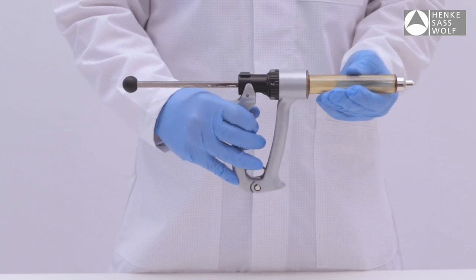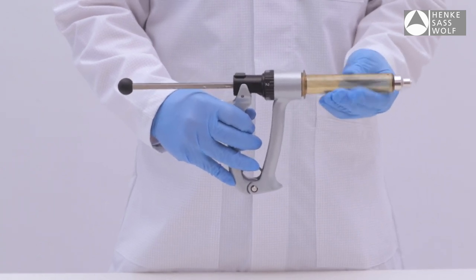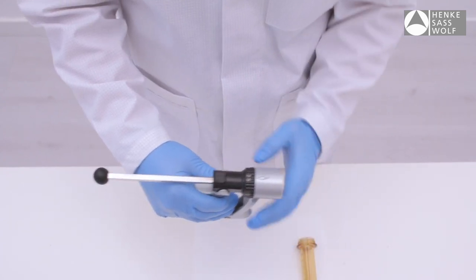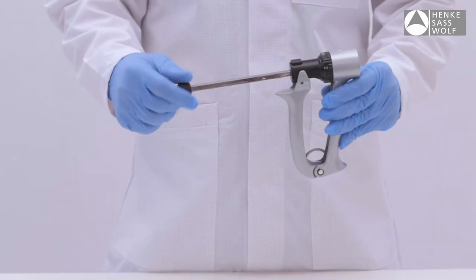Unscrew the medical grade plastic barrel from the fixed handle. Unscrew black knob at piston end.